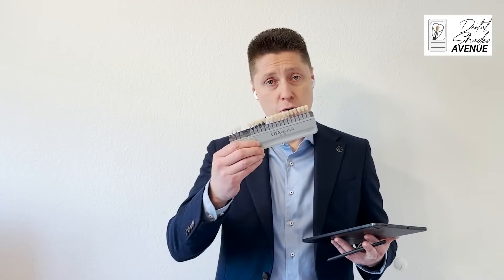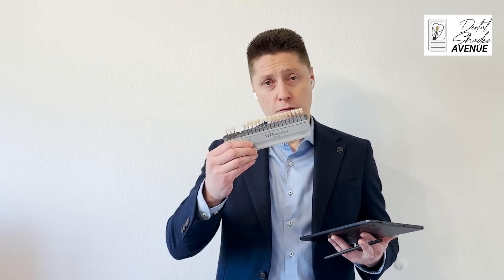Hello, my name is Oskar Zimmerman from Dental Shades Avenue. Today in this video I would like to show you how easy it is to measure color on teeth. So instead of using a shade guide and doing it manually — for example a shade guide from Vita Classic, 3D, or any other vendor — now it's possible to use it on your smartphone or tablet.